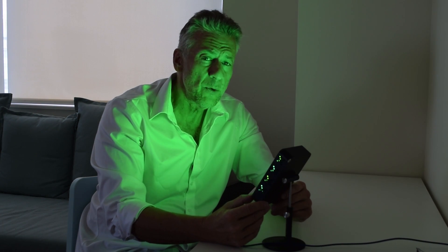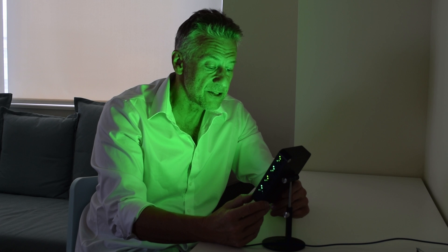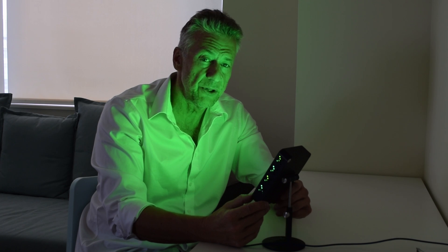The doctor can activate the green light for you, but nobody knows what wavelengths or intensities are going to work best. You've got to be the one to adjust the different modes and intensities to find the combination that works best for you.